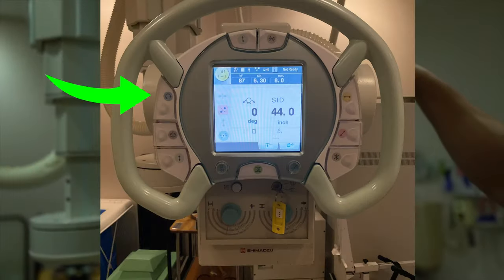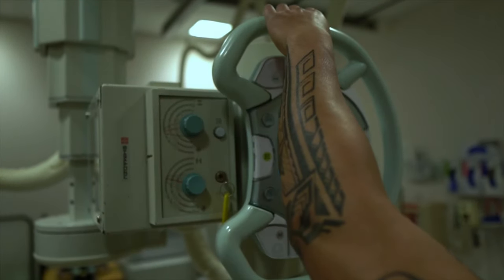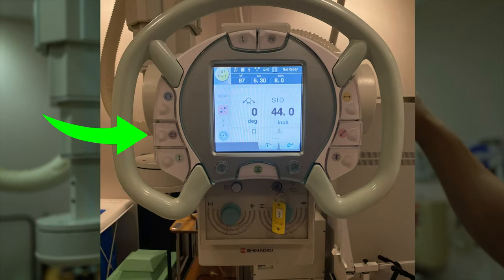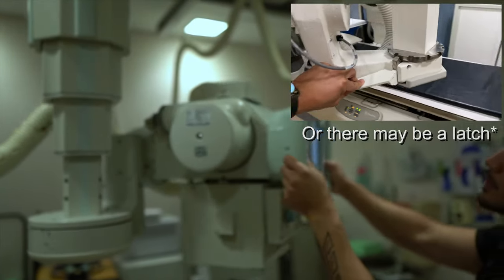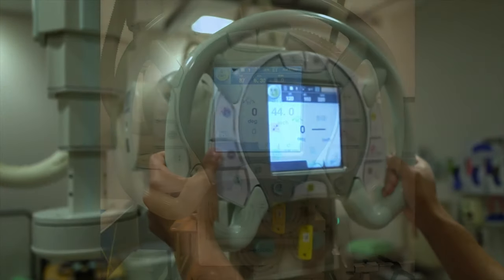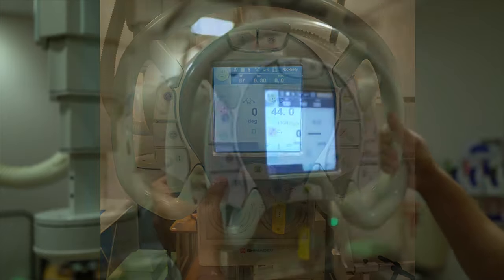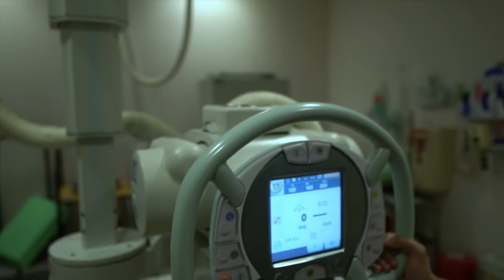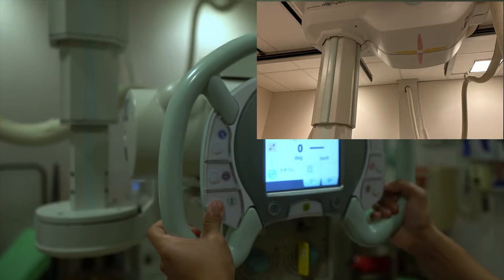First, we have your tube angulation button, which allows you to tilt your tube either caudal or cephalic. Next is what I'll call your swivel button — this allows you to swivel your tube around for cross-table radiographs and trauma situations. Next is the vertical button, which lets you adjust your tube higher or lower. Most of the time, your vertical, transverse, and longitudinal buttons are color-coordinated with markings on the railings or ceiling mount to help remind you what each button does.